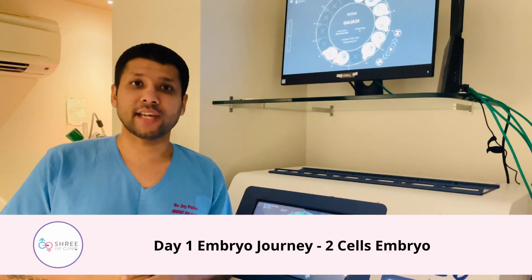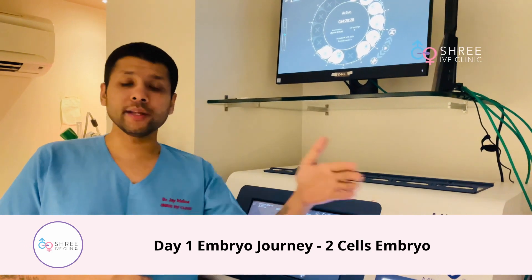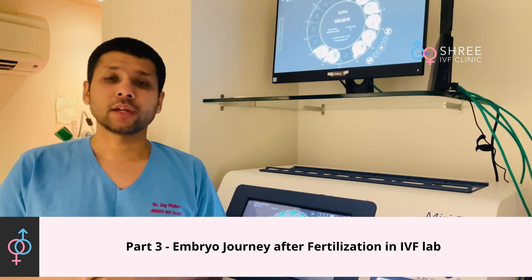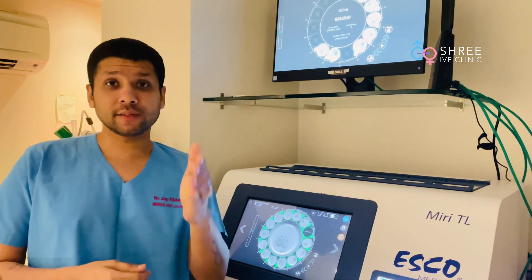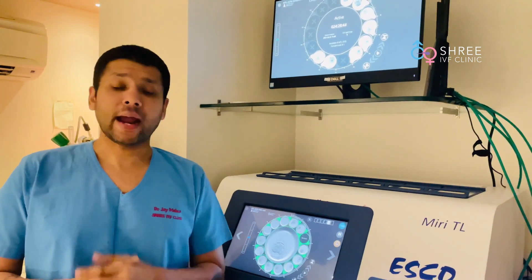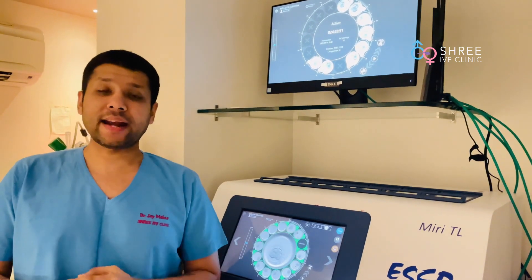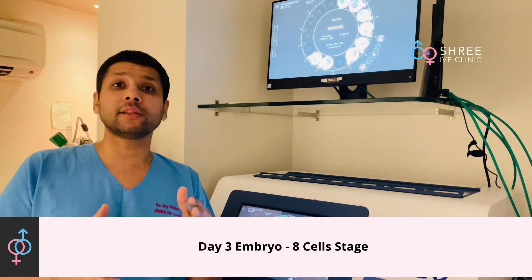Hello everyone, this is Dr. Jay Mehta here from Mumbai, and we are continuing this video series as part of the journey of the embryo inside the IVF laboratory. In our previous videos we've already discussed about the 2PN stage, which is the first stage after fertilization, and after that we looked at the 4-cell stage, called day 2 of the embryo kinetics. In today's episode we are going to have a look at day 3.